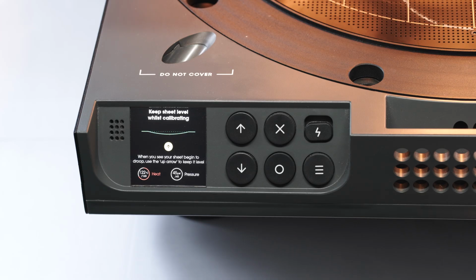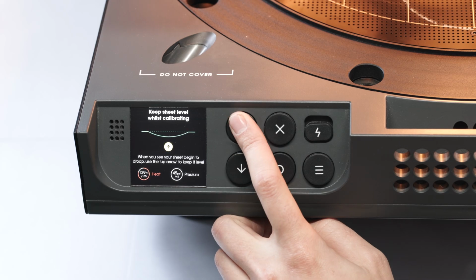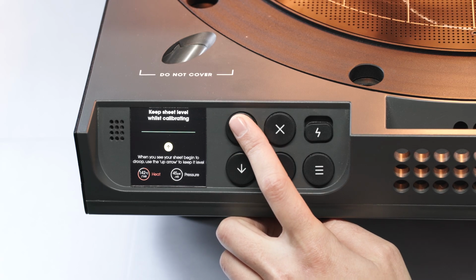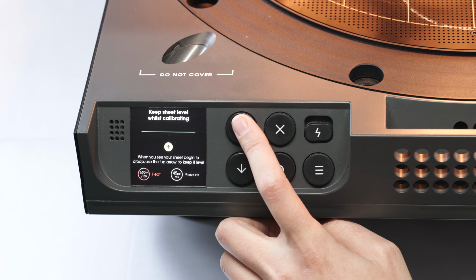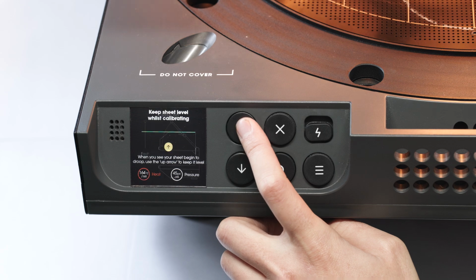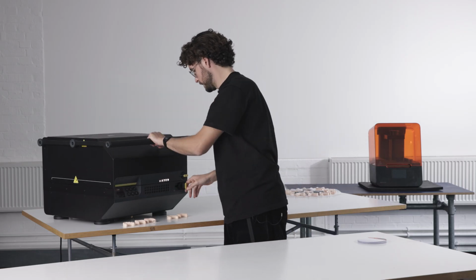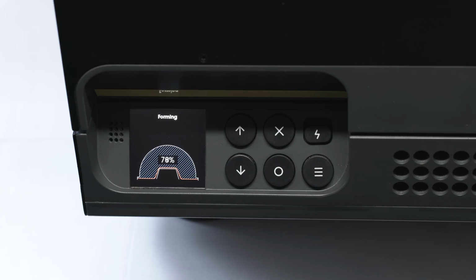So the compressor's switched off. We're just going to keep a really close eye on these sheet materials. So as the sheet material starts to droop, we're going to press this up arrow here, and that's going to tell the leveling system inside the machine to bring the sheet up to level a little bit. You can see the heaters starting to flicker, which is an indication that it's nearly ready to go, and the machine's going to beep at us. We're going to bring this down, lock it off, and release all of that pressure into the chamber.